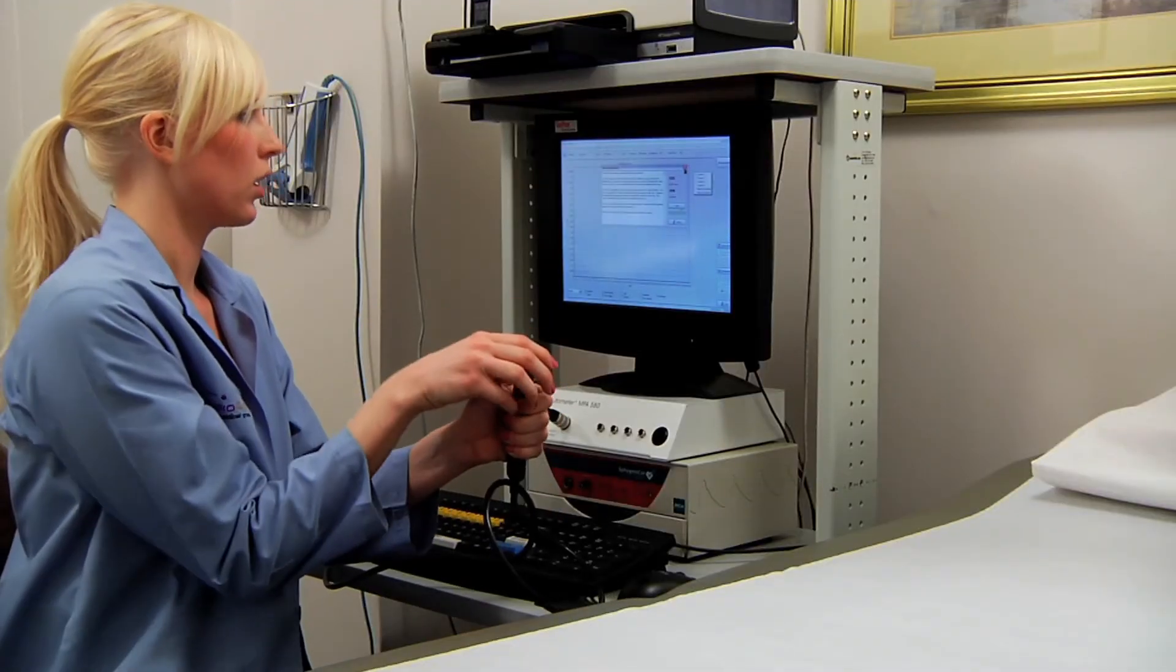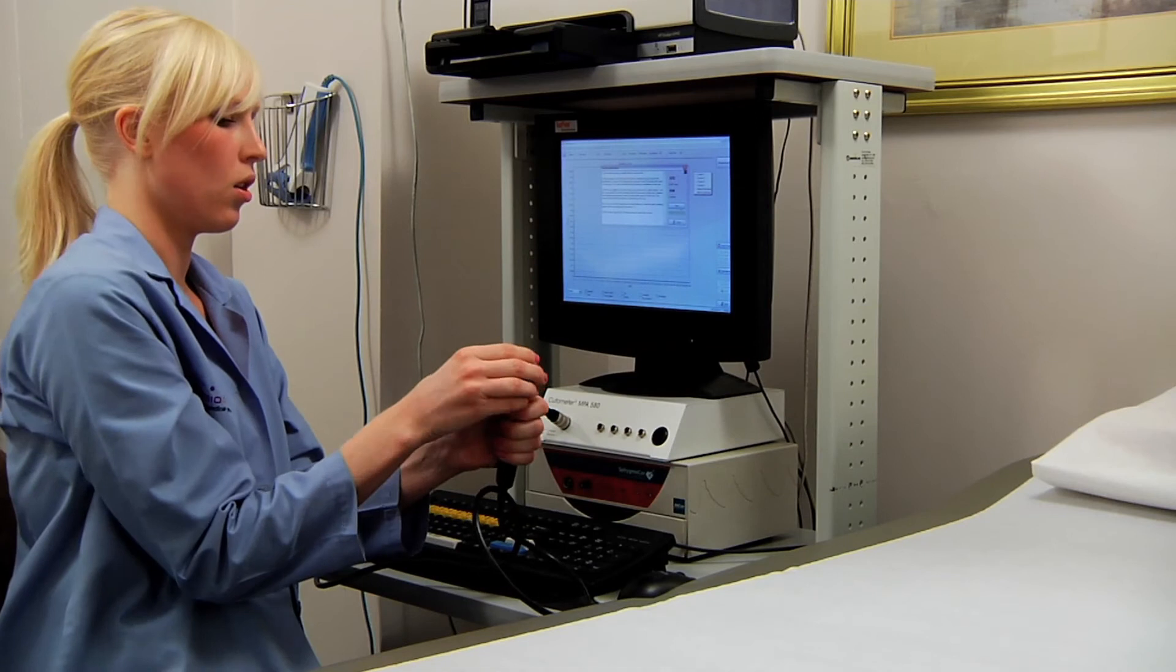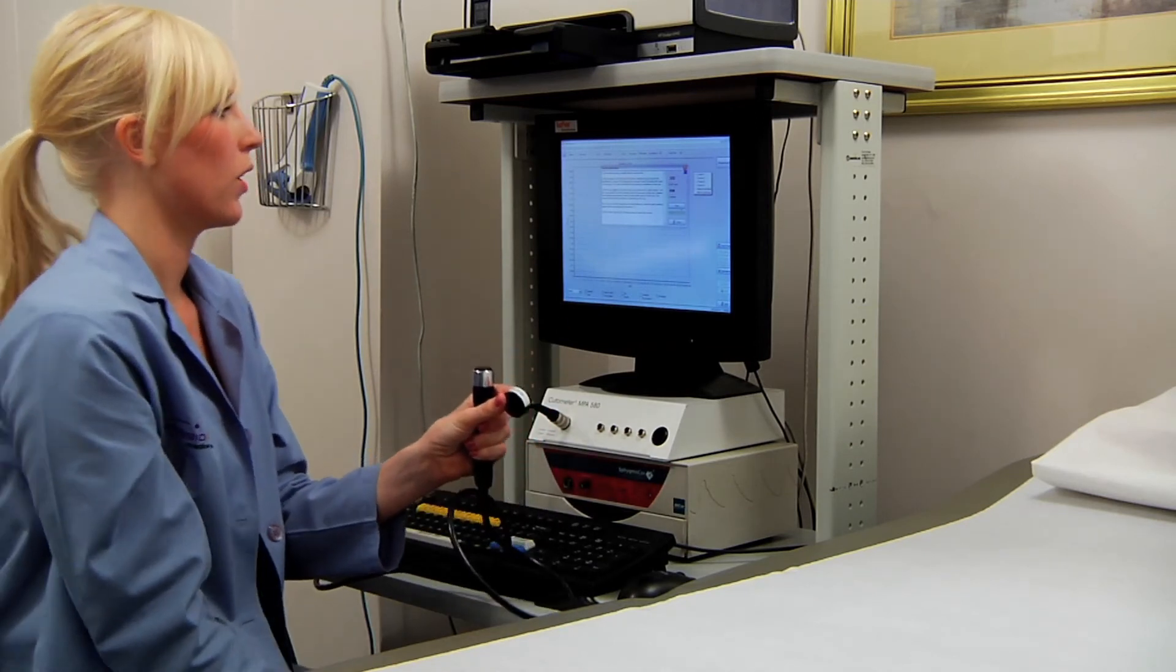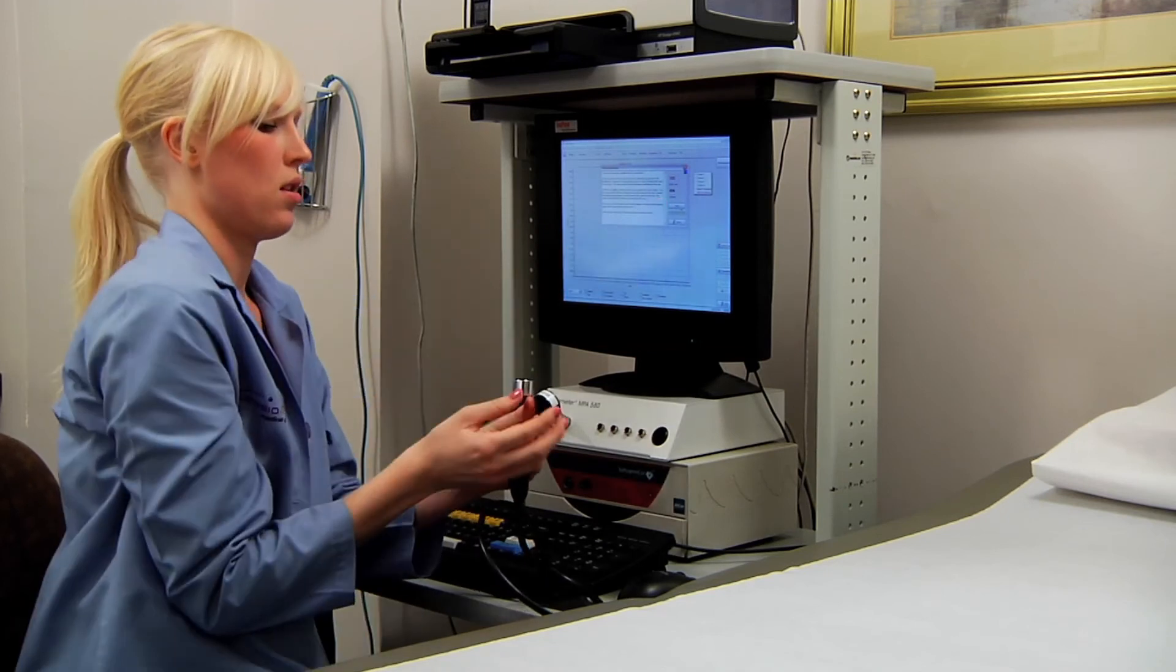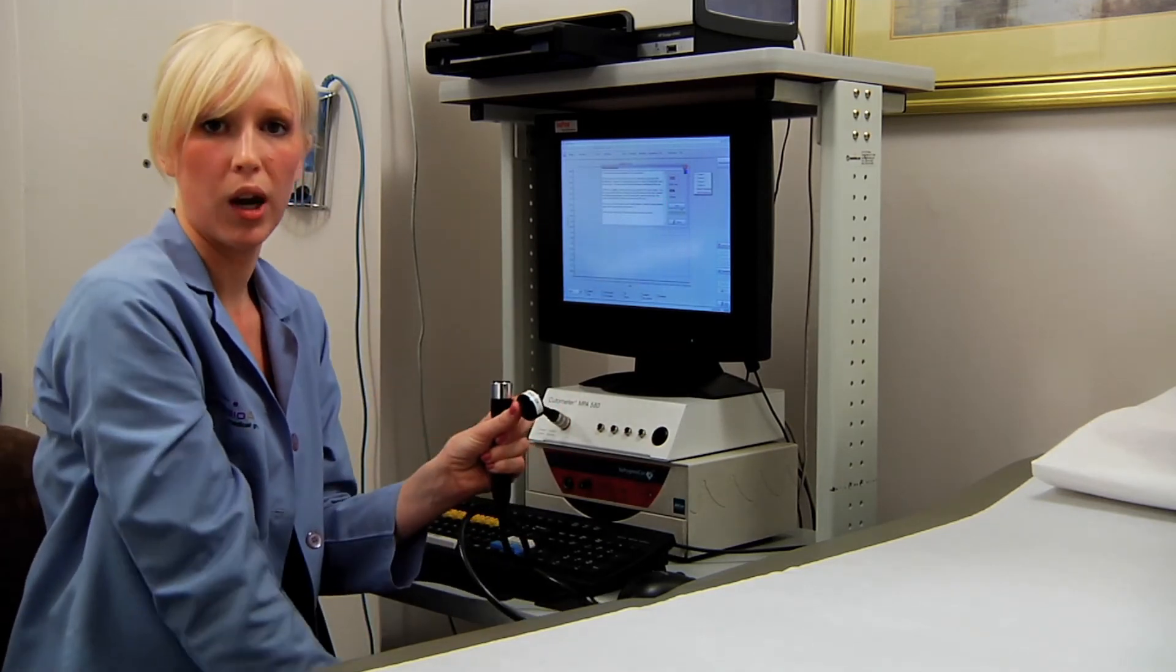As soon as it's done, you're again going to compare the calibration value on the screen with that on the probe for letter B. So our calibration value was 498 and we should be within 470 to 530. So we're calibrated properly.